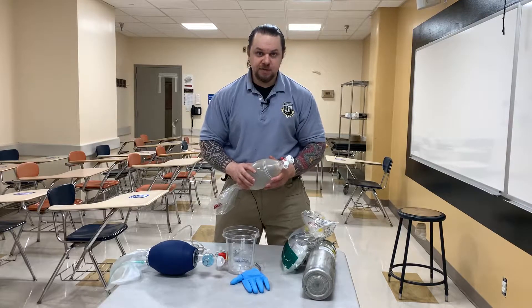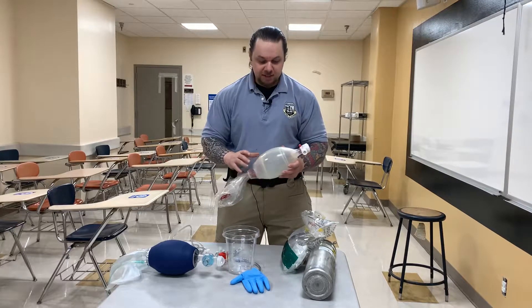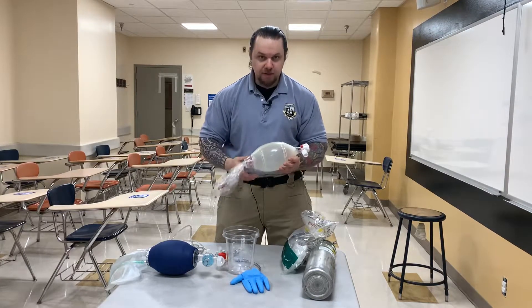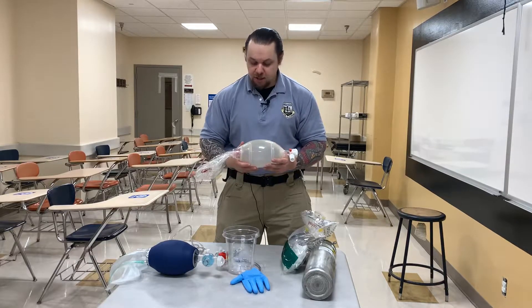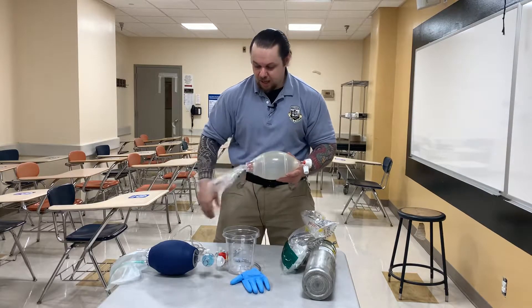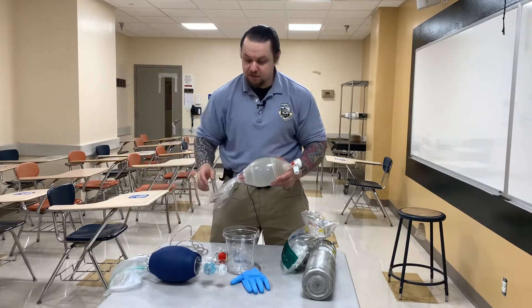Hello, my name is Nikolai Yusupov, and in this video I'm going to show you how to utilize your BVM properly. Far too many times when we do skills in the lab, I see this device being used inappropriately. BVM — such a simple device — how can you go wrong? Well, there are different components, and different manufacturers make different designs. I'm going to go over the basic Ambu bag and another device made by Life Support Products, and you'll notice they're made differently and have different components.